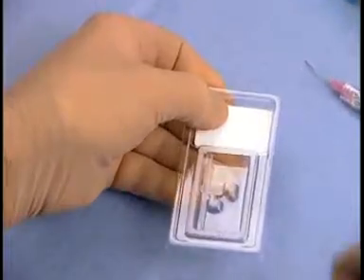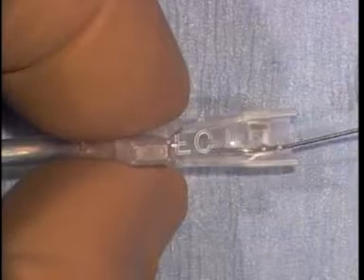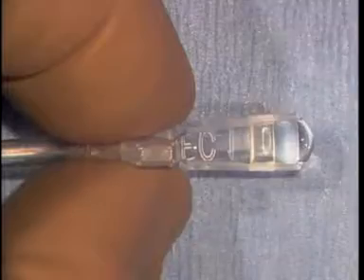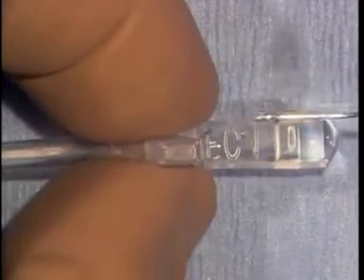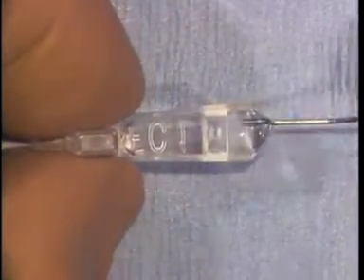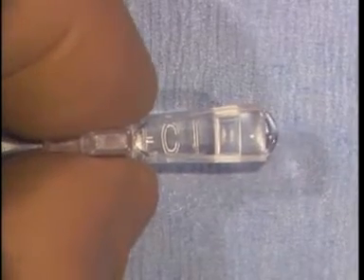Next, remove the injector cartridge from the package and hold it between the thumb and forefinger at the central area near the locking tab. Fill the injector cartridge with BSS. Then partially fill the cartridge with a methyl cellulose type viscoelastic, creating a trail out of the cartridge bay. This combination will minimize friction between the ICL and the cartridge walls. Set the cartridge aside.